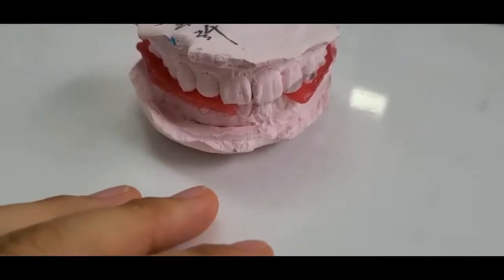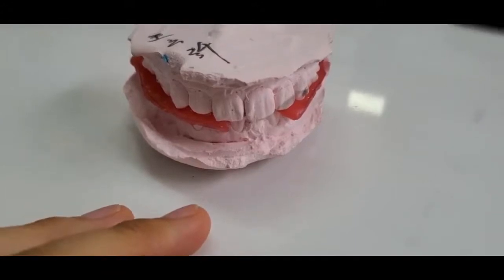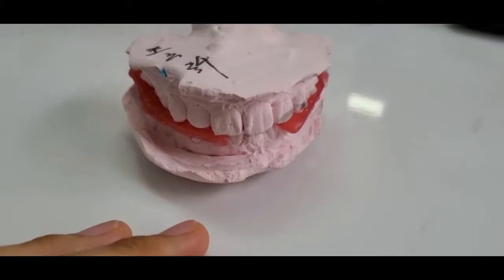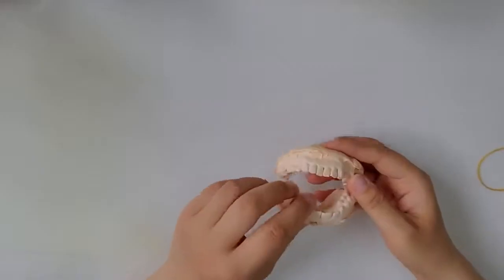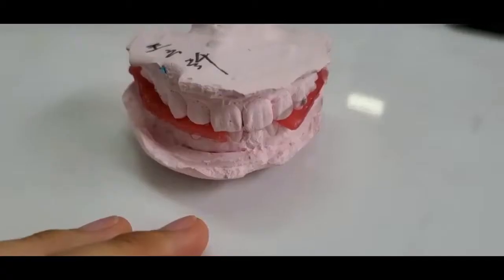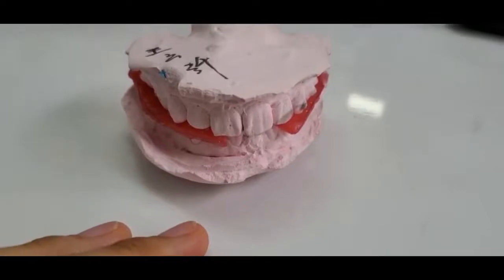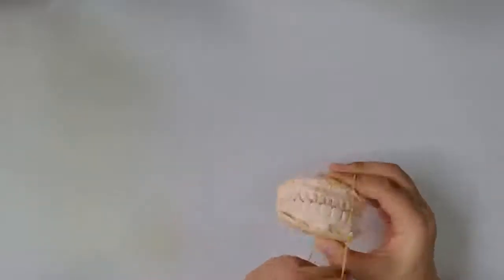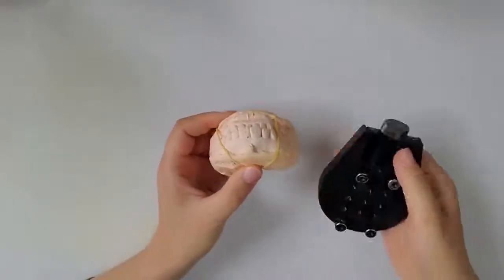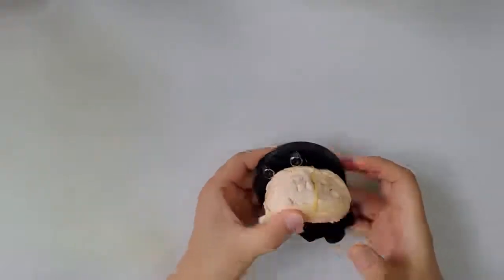If we only scan the occlusion, most of the time we just need to do the orthodontics. The procedure is very easy. Scan the occlusion, scan the upper jaw, scan the lower jaw, then merge both jaws by the bite location. If you have this base type, fix it directly. If not, we need a rubber band to fix it first. Someone asked about the articulator. Yes, we could scan the articulator too. I will demo it later.